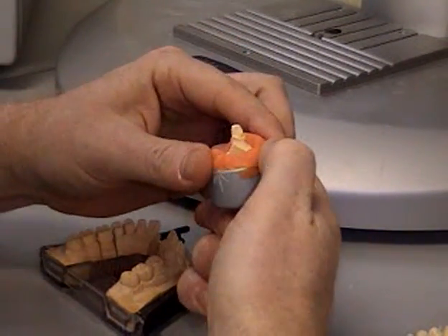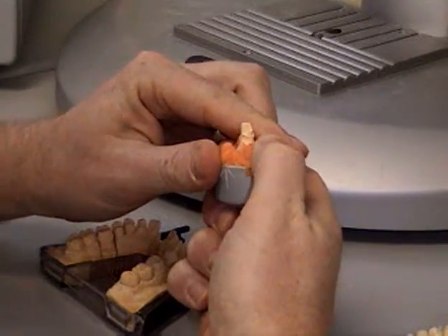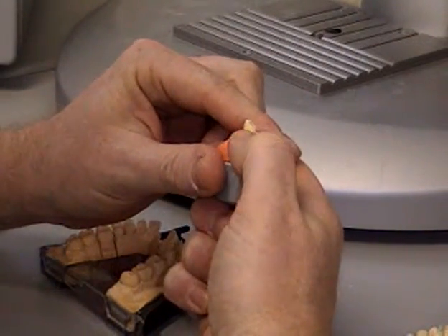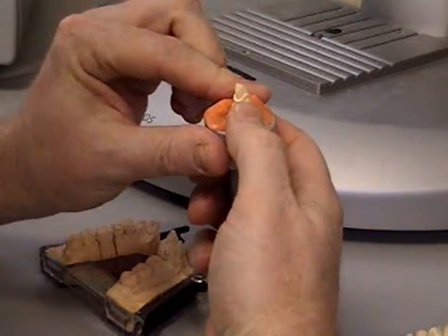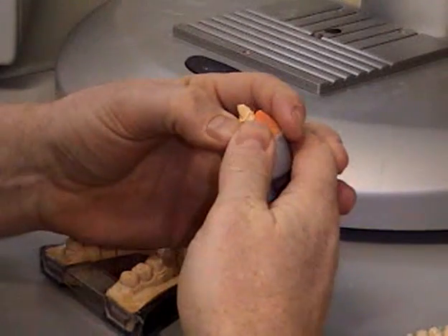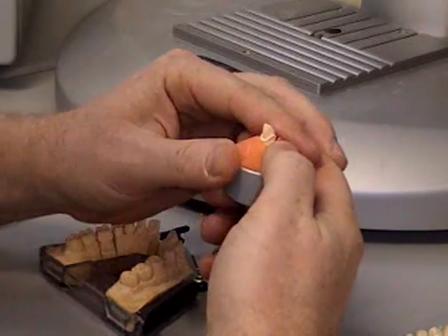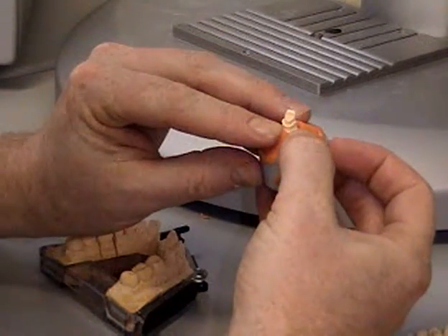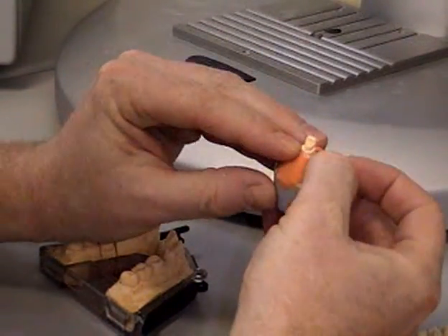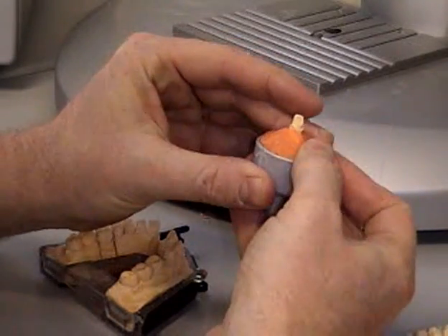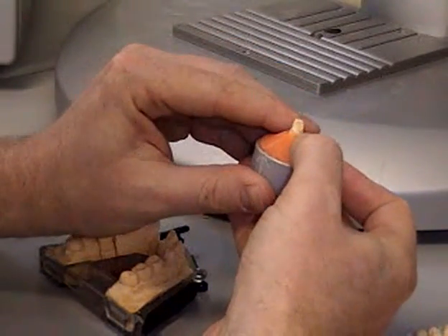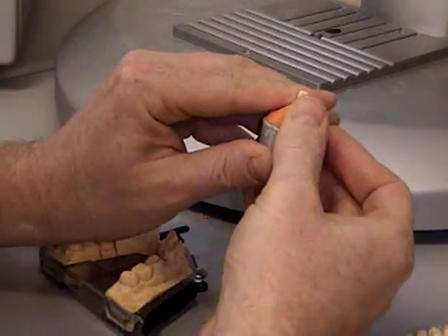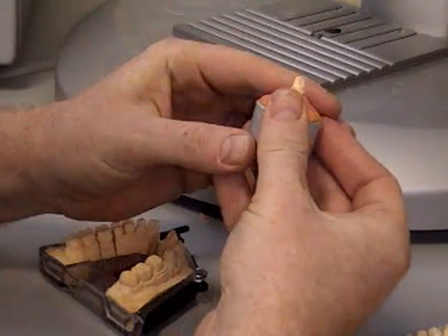It has a second purpose this plasticine in that the scanner can't see it so you can hide bits of your model as well. So we build it up in a cone shape around the die and that hides the base of the die and just leaves the margin exposed.